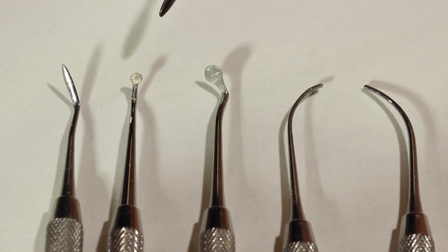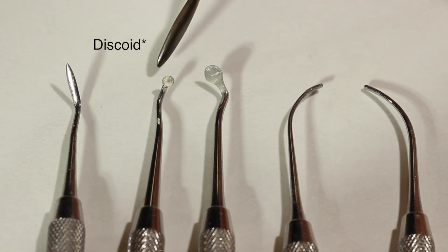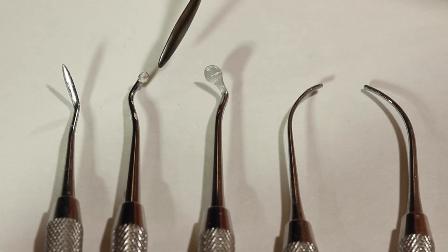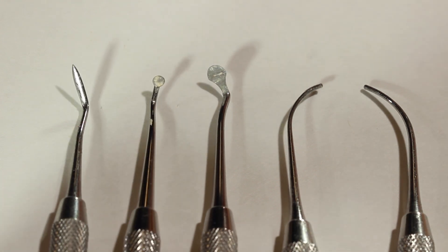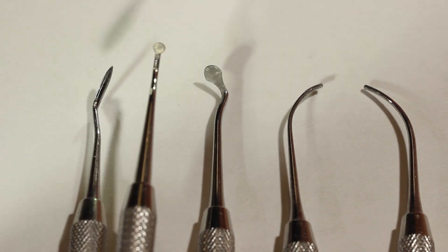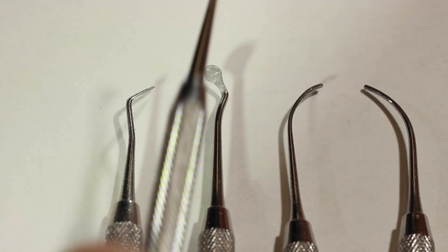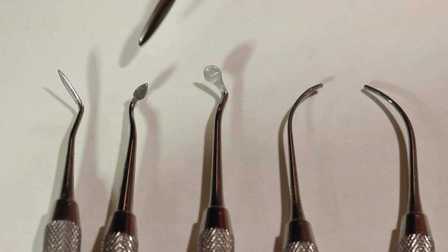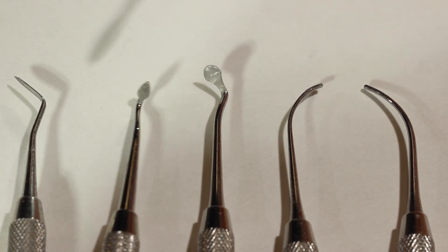The next instrument we have is a discoid-cleoid. This is the discoid aspect of it — it is a circular instrument on this end, which is great for removing blebs on stone or during waxing. You can use it in burnishing motions and other ways. It has this other side here, the cleoid end, which is shaped more like a pear and has similar action.